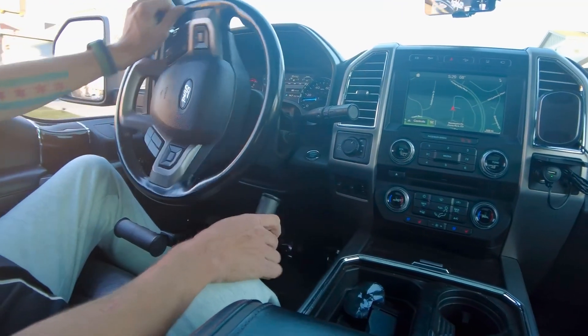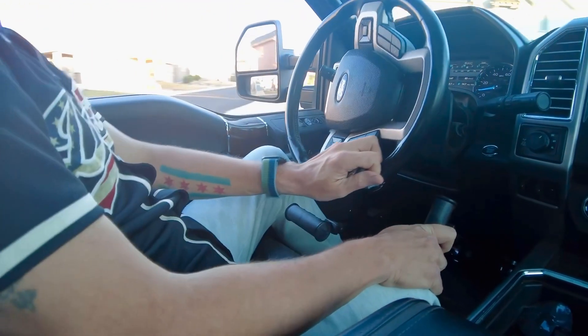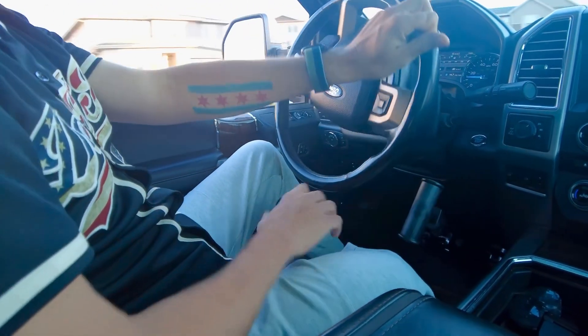You can see I can even be pretty rough with it and it holds. Boy, this is much better than driving with the left foot — some of you know that's what I tried the other day and I really wasn't thrilled with it. And there's also the fact that I may lose the left leg soon anyway. Getting back to the Pedal Master — this thing is actually great. Very secure on the pedals, just a really nice feel to it. They're super lightweight.